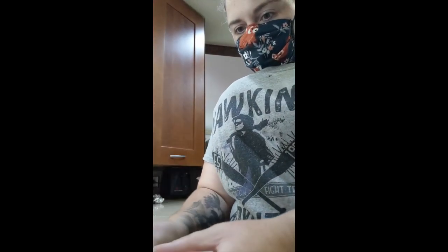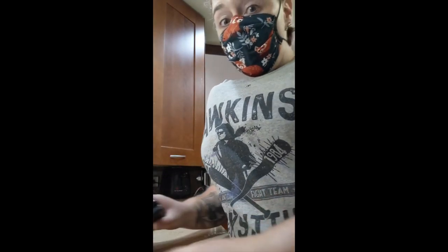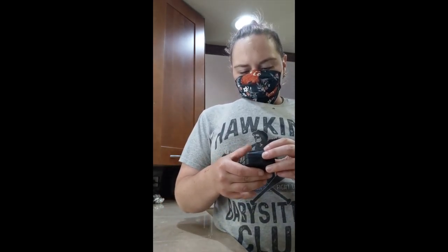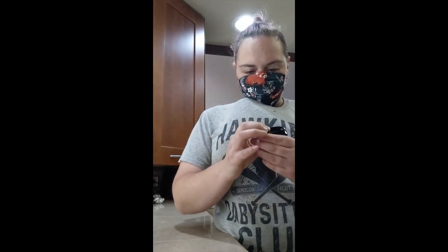Final check-in. This time I danced around the kitchen. I cleaned the duck brooder because it's smelly. I moved the big shaving bale for the ducks to the house. Reading is 99 oxygen, 113 pulse rate.